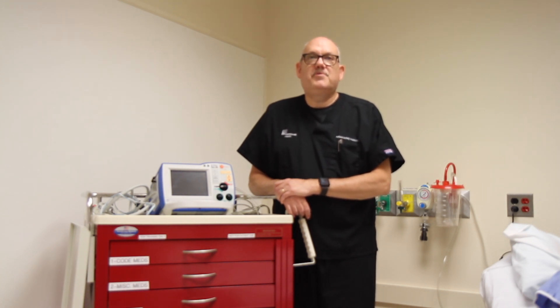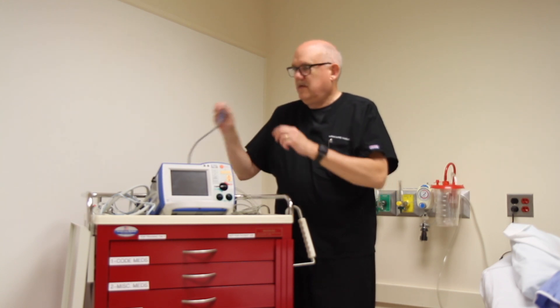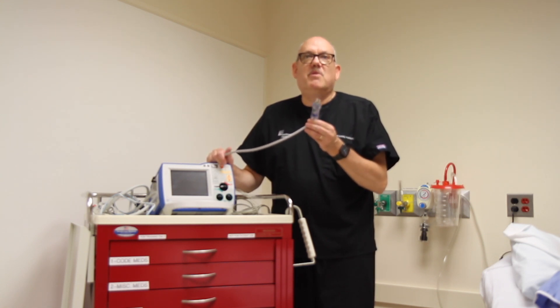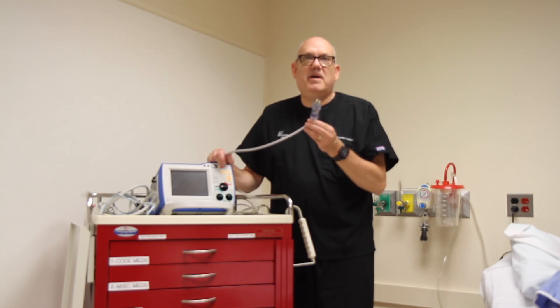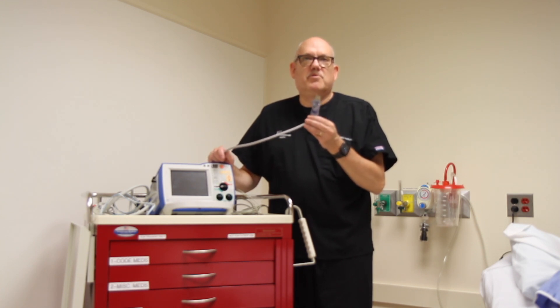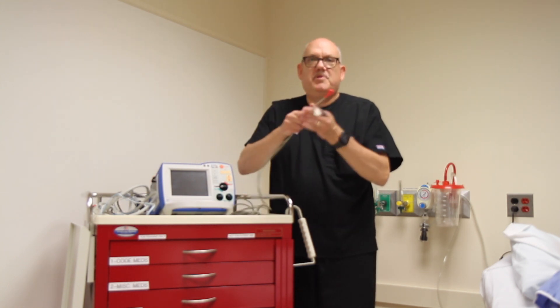Every device has the same basic controls. We will start with the cables. Power cable: monitor defibrillators run on battery power during most emergencies. In order to keep those batteries charged up and ready for action, the device must be plugged into a wall power supply on a regular basis.